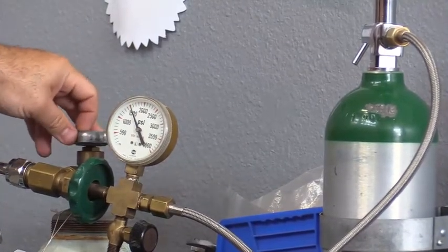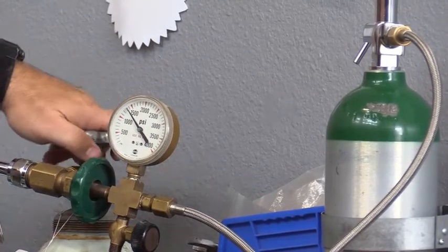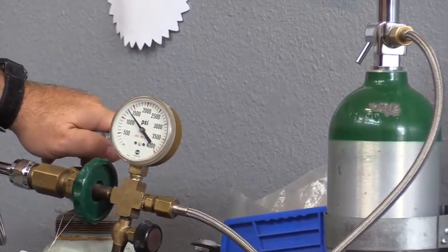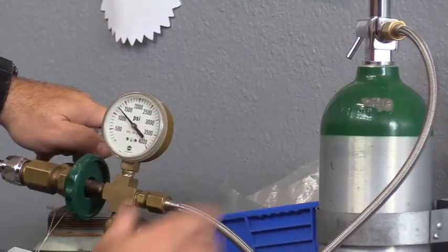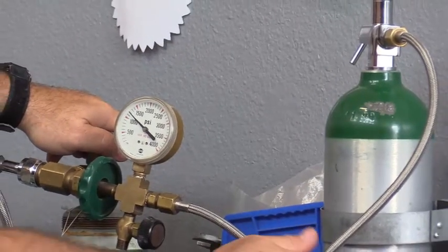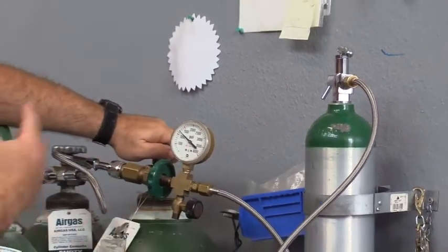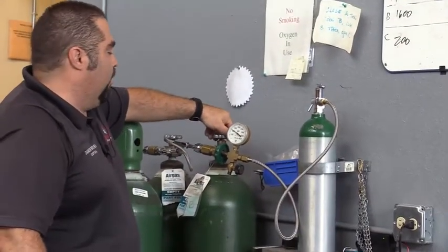Now you always want to open these valves slowly. If you open them really fast, you're going to get a horrible whining sound. The other thing you're going to get is frost accumulate on the hose and the bottle itself is going to heat up pretty extensively. If you're getting any of those signs, so either frost, heat, or really awful sounds, you're going too fast. You need to slow down how quickly you're opening the valve.